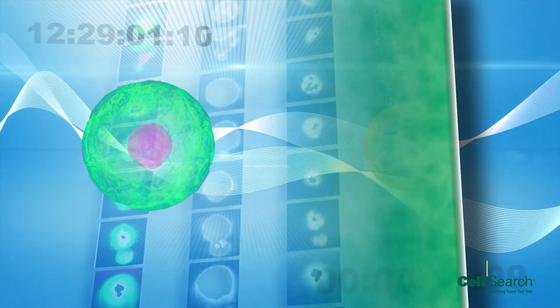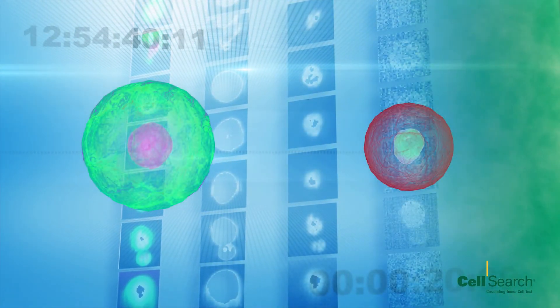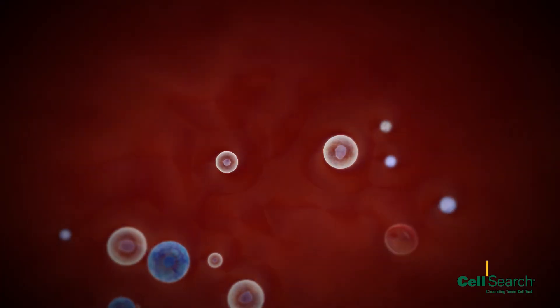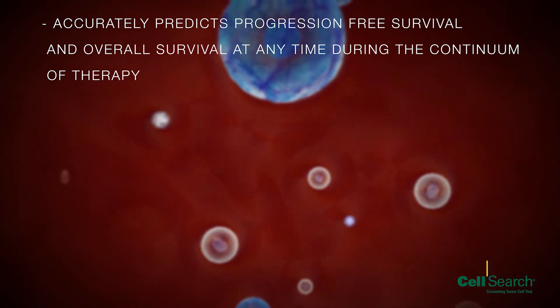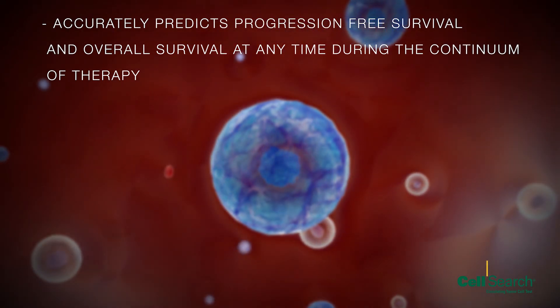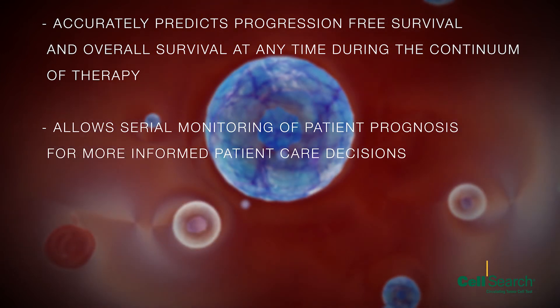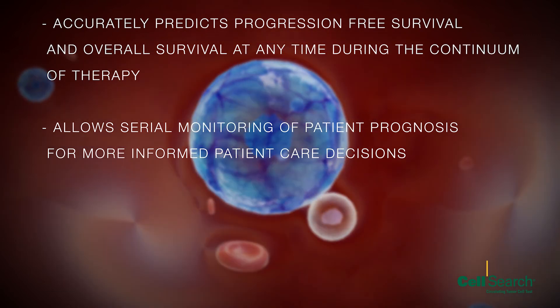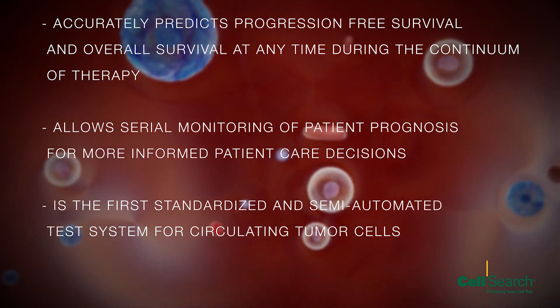The CellSearch CTC test is used to aid in the monitoring of patients with metastatic breast cancer. The CellSearch circulating tumour cell test accurately predicts progression-free survival and overall survival at any time during the continuum of therapy, allowing serial monitoring of patient prognosis for more informed patient care decisions. It's the first standardized and semi-automated test system for circulating tumour cells.